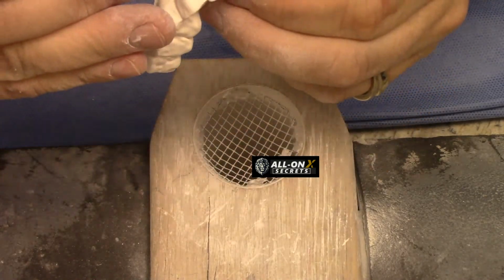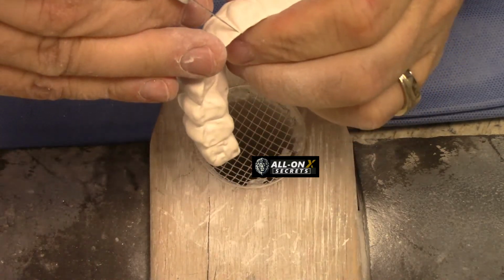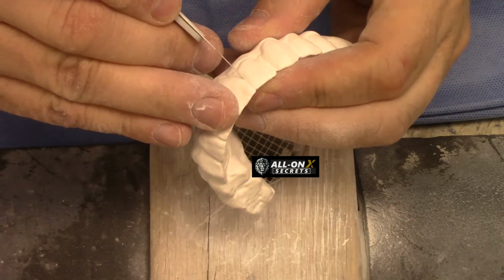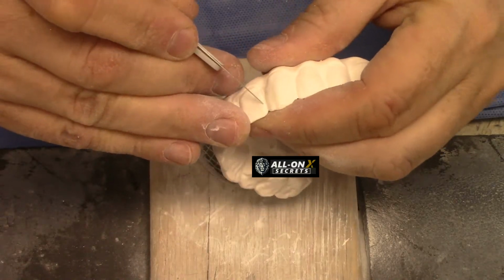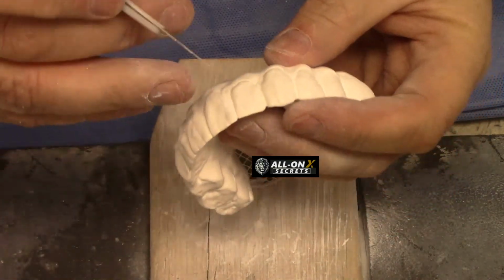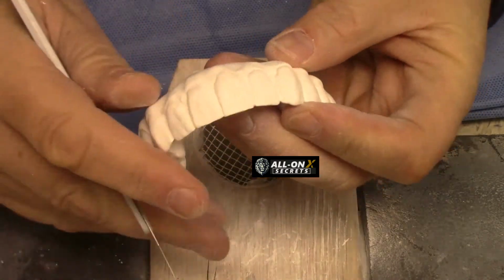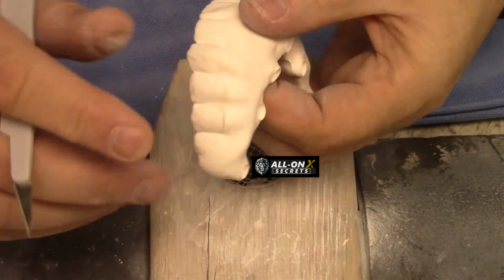This is where you're going to get the detail. The milling machine should mill to this, but if you put it on some of the faster settings, it doesn't do as much detail. But I really like the hand. I like to do a little bit of sculpting into it to give it what I want, and I just trust my hands more. Not everyone does this.